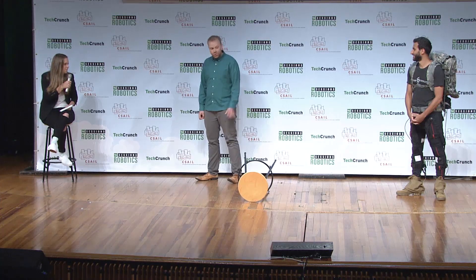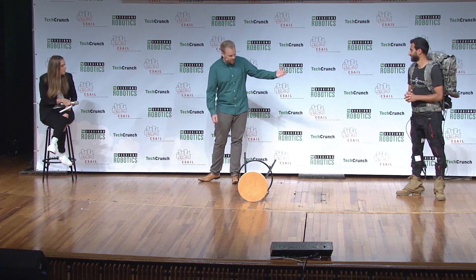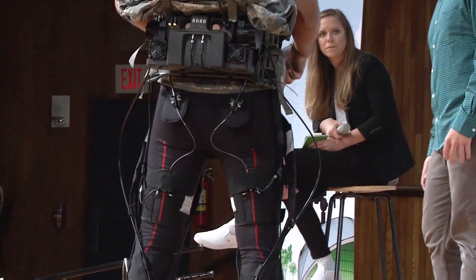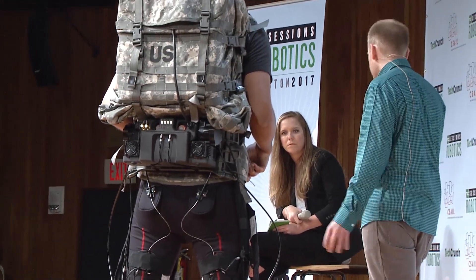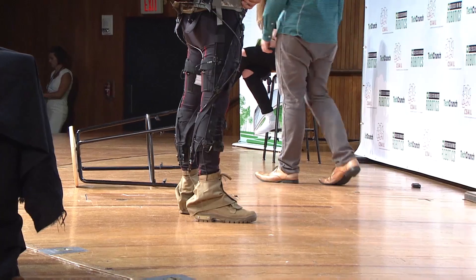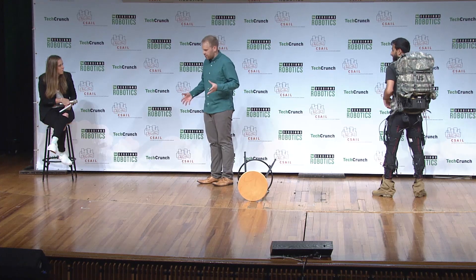And eventually, the look matters too — he looks pretty cool right now but there's an army backpack on. For people who just want normal-looking pants, that's not going to work. But that's kind of the benefit of these suits — even though it's still somewhat early stages, the vision down the road is that you can have something providing support and force that fits beneath your clothes. It's not too much of a jump to tuck in some of these cables and things hanging out to the side, get a nice pair of pants over that. The idea is to help people in their daily lives but not be a big sign that says, 'I need this device to get around.'